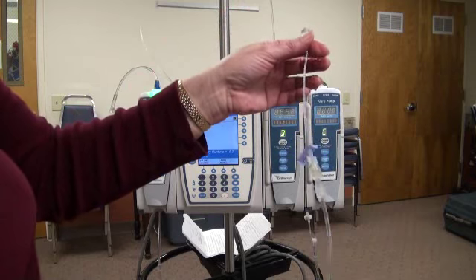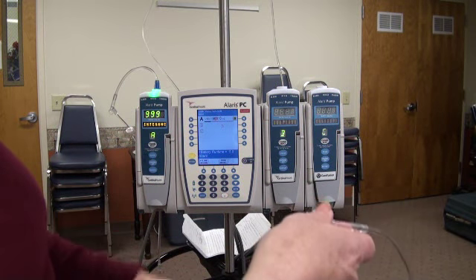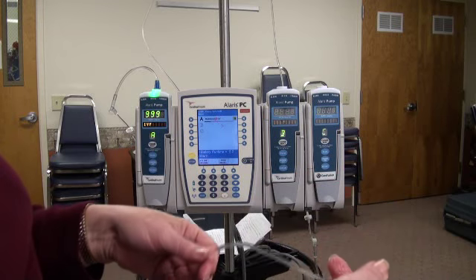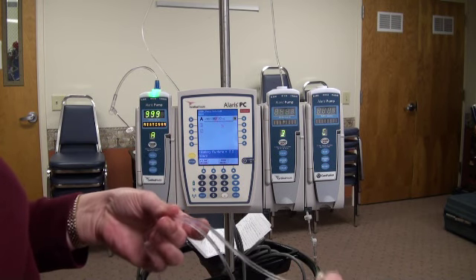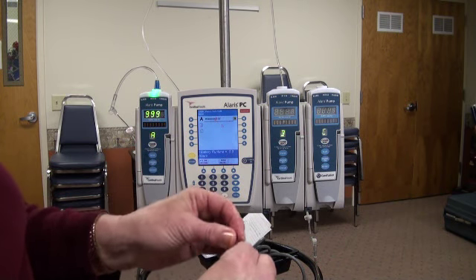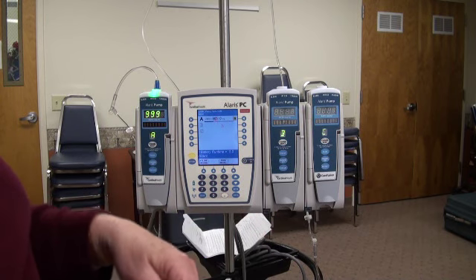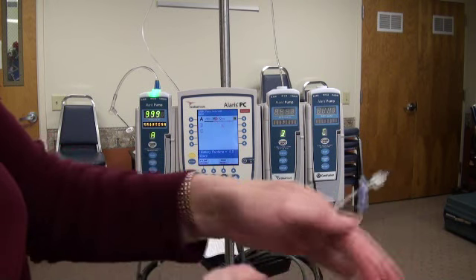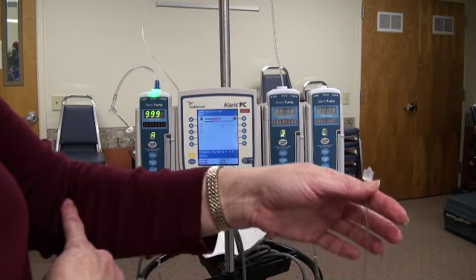We've had patients play with these when they're in the back of the ambulance. You know, they're nervous, whatever. They're playing with their IV tubing. They'll kink it off, and when they kink it off, it can stop the IV fluid. A lot of our IVs will be in their elbow. They bend their elbow up. That's going to stop the flow of the IV solution.